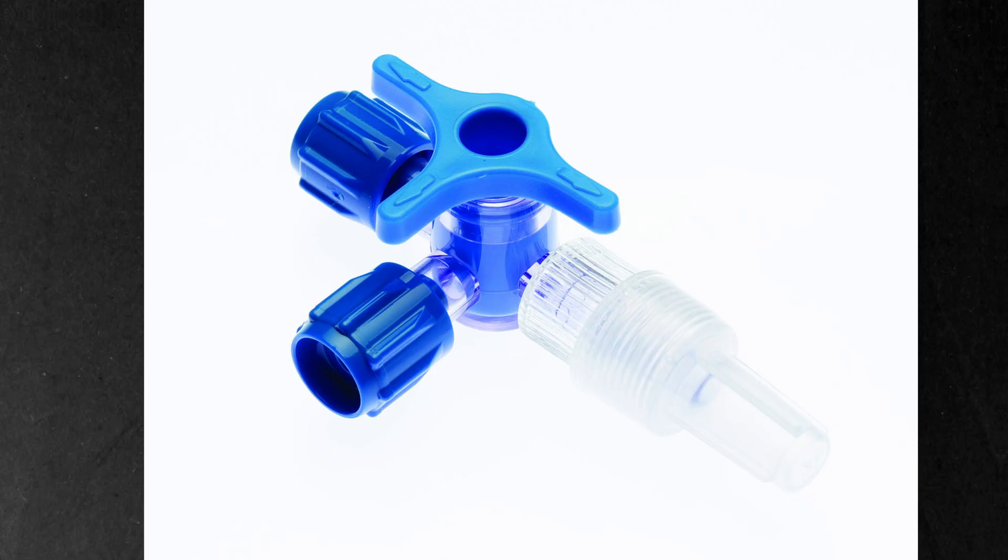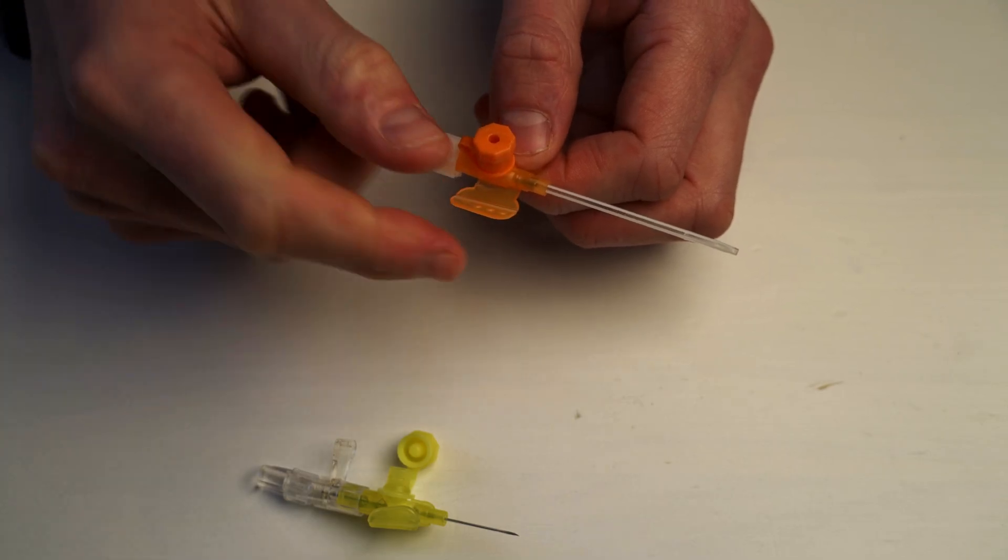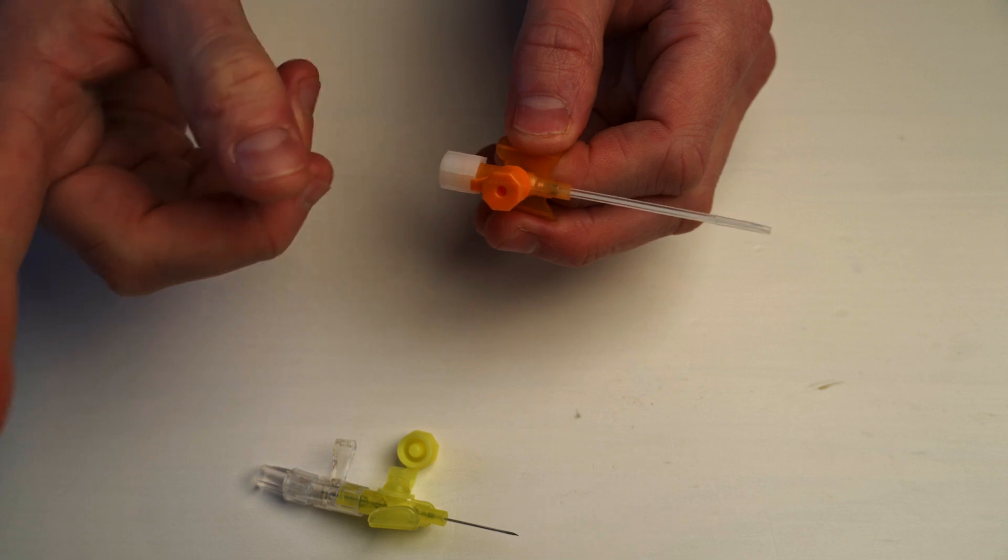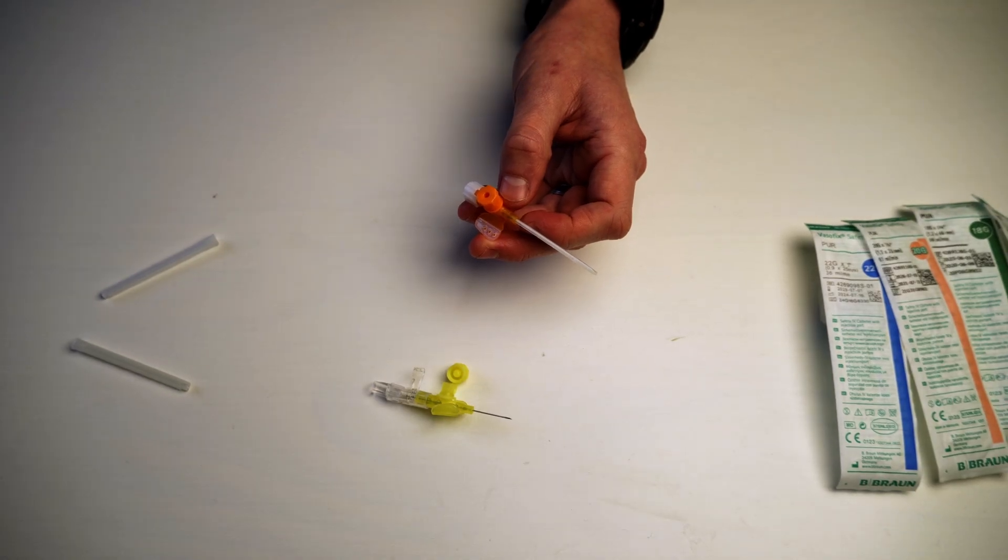The other way you can do this is that you can actually attach a three-way stopcock. So that's those three valves that you can then control which direction the fluid is going. If you want to see a cool video about that, I'm going to make one. I'll put the link down here.